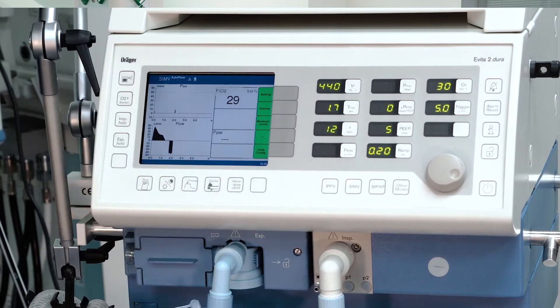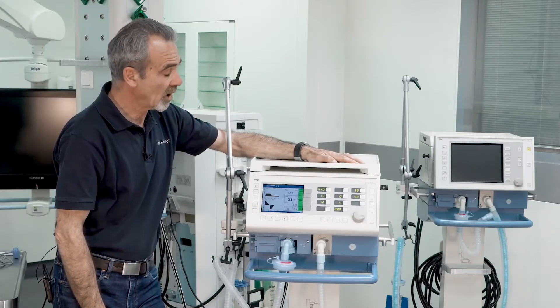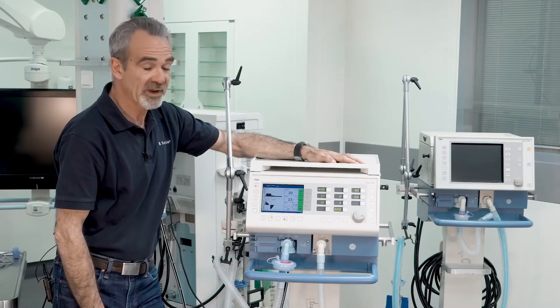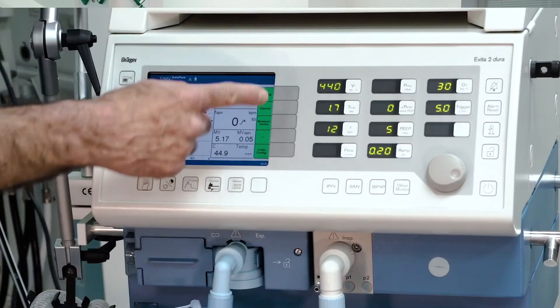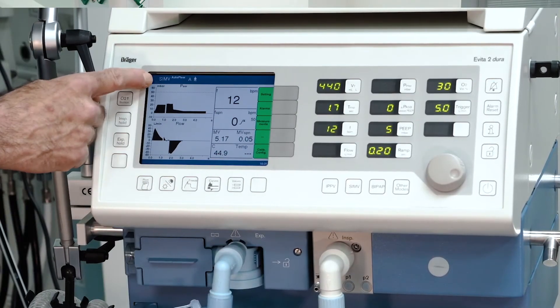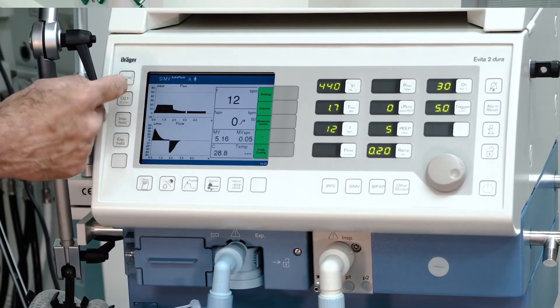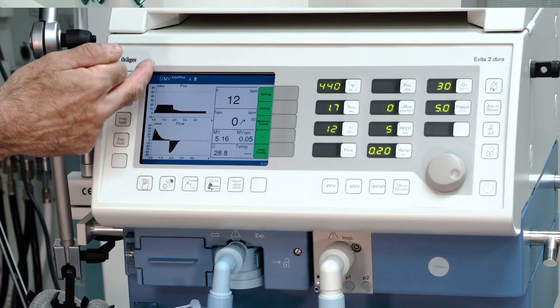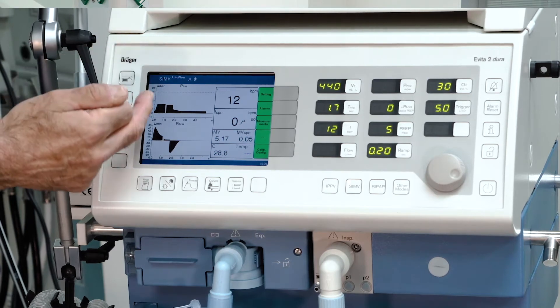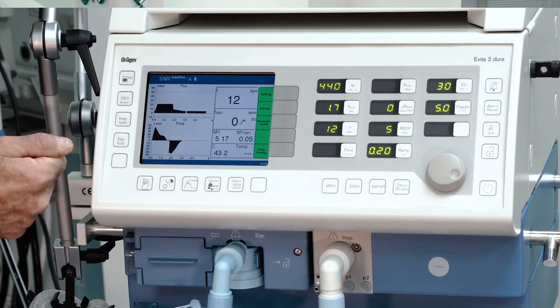With this key you always get back into the main screen. In the upper field of the screen you always see the ventilation mode and the selected patient group.